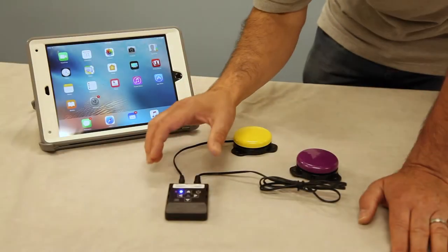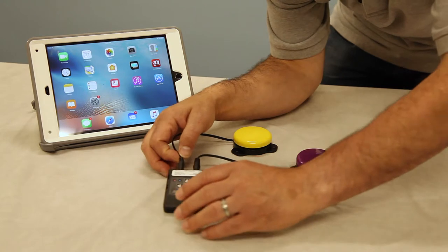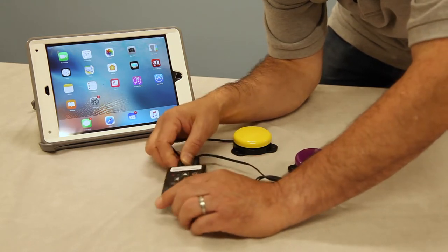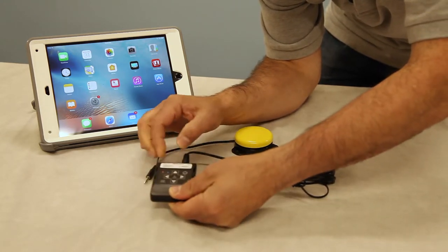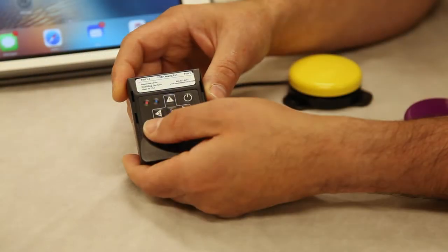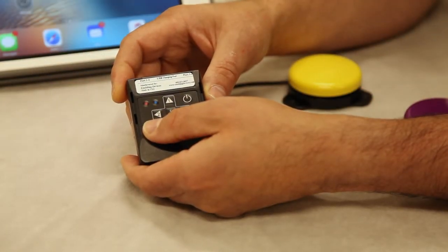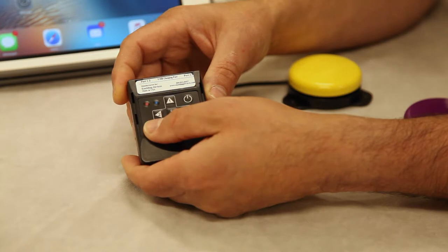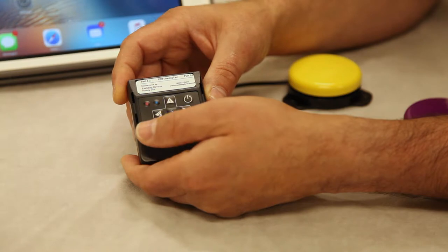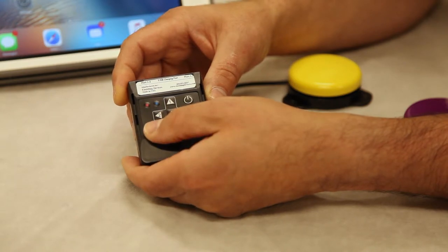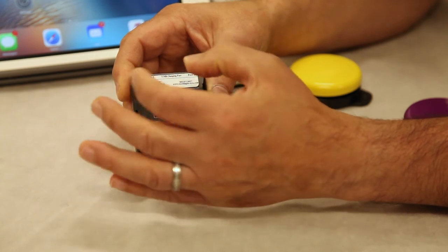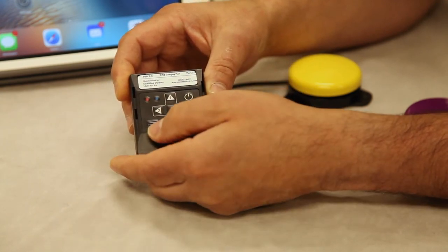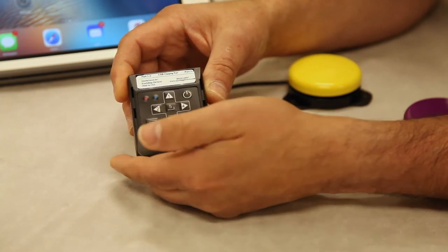If you need to change the modes, you just press this mode selector. I normally recommend taking your switches out when you're changing modes. When you hold down this mode selector, you want to hold it down for the number of red flashes for the mode. So for mode 5 you would hold it down for 5 red flashes, let it go. Then you're going to see both lights will flash 5 times to indicate it's the correct mode. So I'm just going to demonstrate.